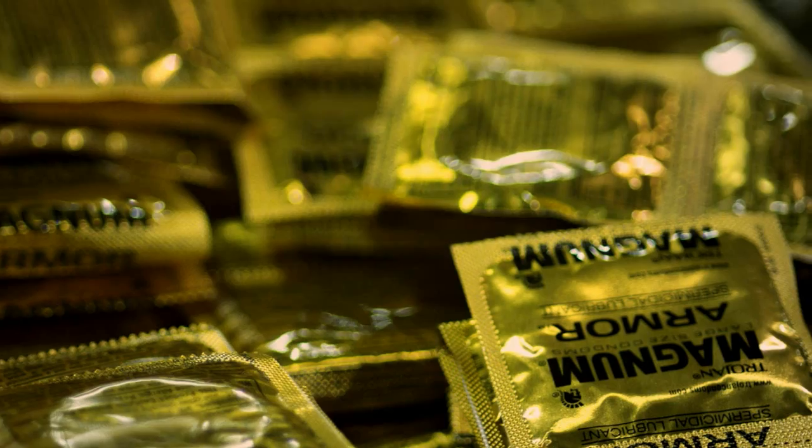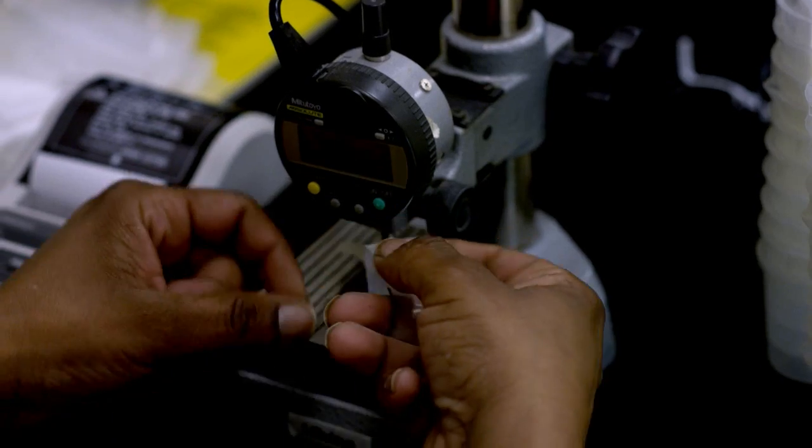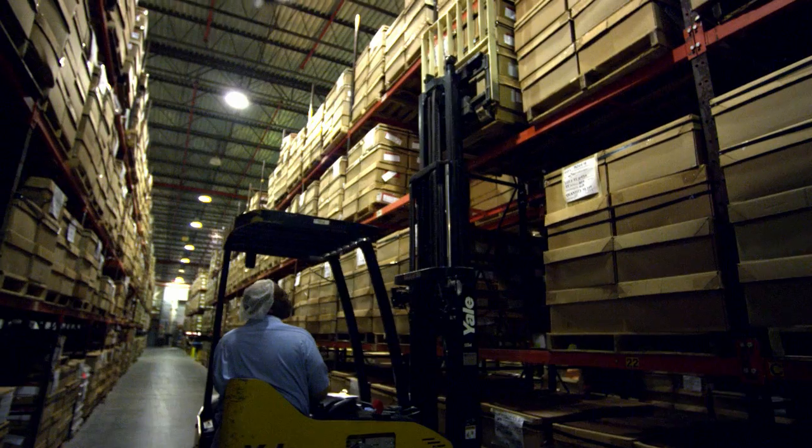These condoms are made in many shapes, styles, and sizes, and every single one of them is tested to ensure it meets the highest government and industry quality standards before it's packaged and shipped.